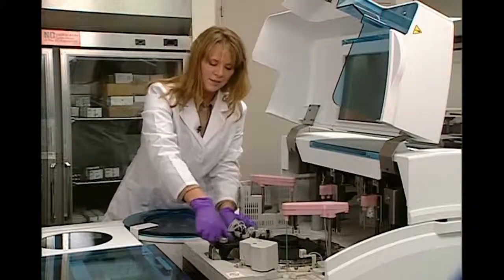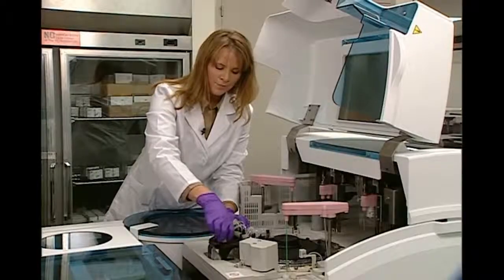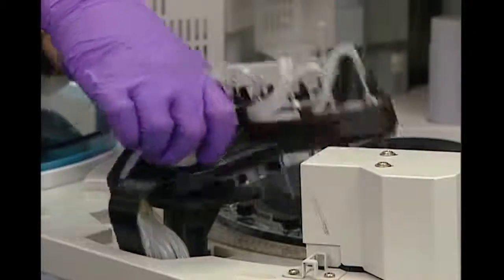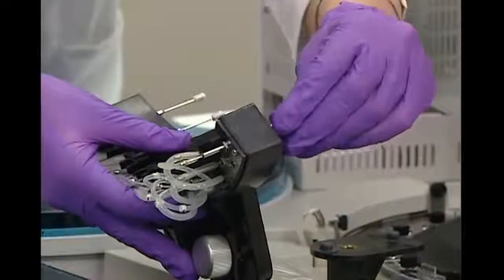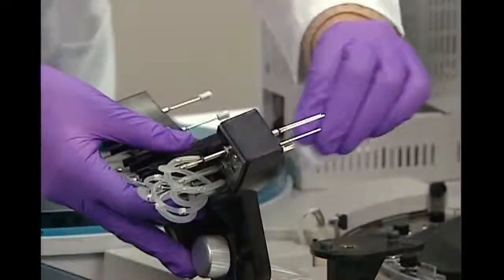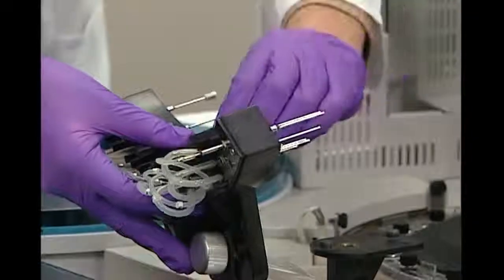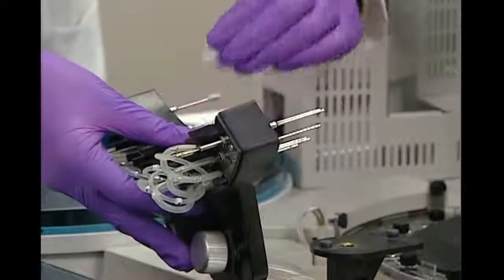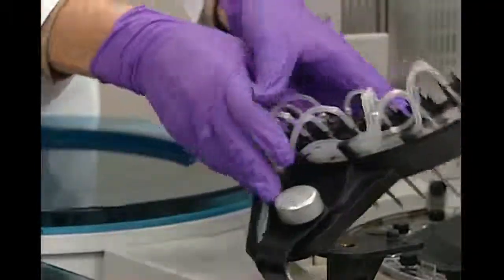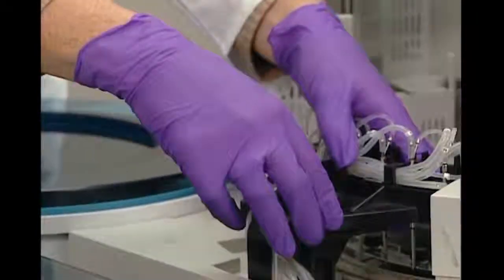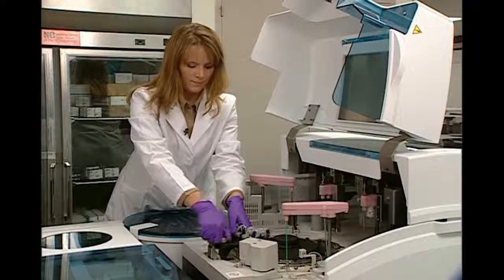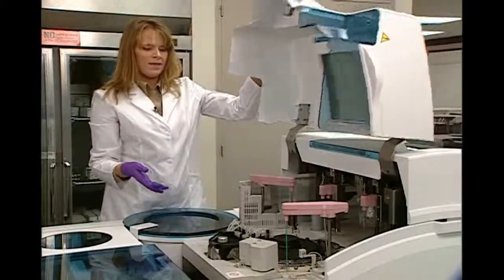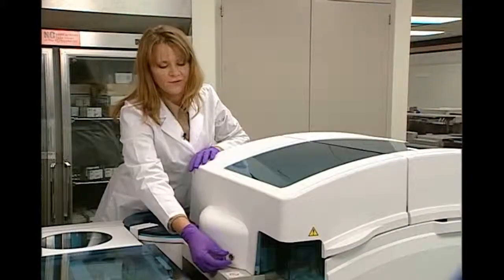For the cell rinse mechanism, I'm going to release it from its platform. And I'm going to wipe it down with gauze soaked in deionized water. And that's the hands-on maintenance for the C501.